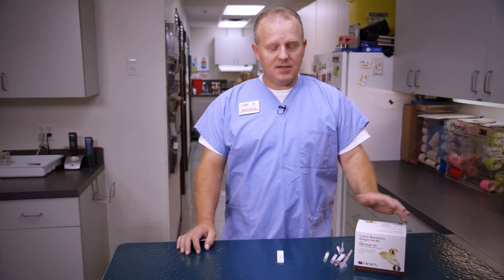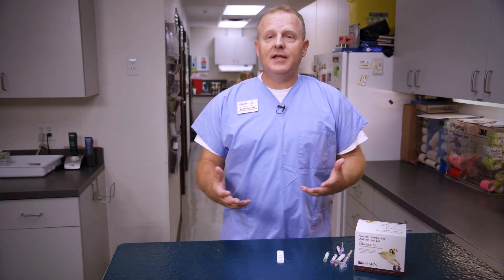Hi, I'm Michael from Windsor Veterinary Clinic. And today I'd just like to tell you why we like the Heska Solostep Heartworm Test. It's fast, it's easy — really the only time that you spend with this product is actually getting your sample.